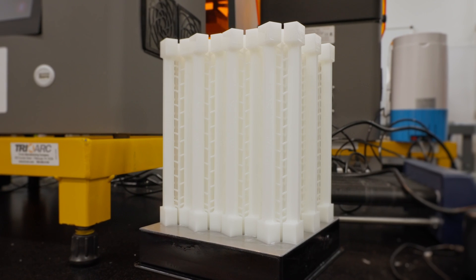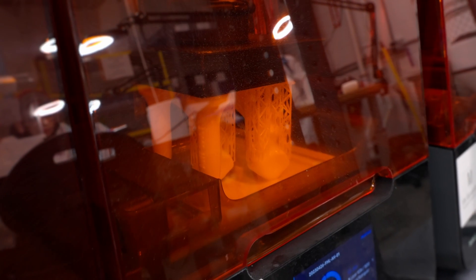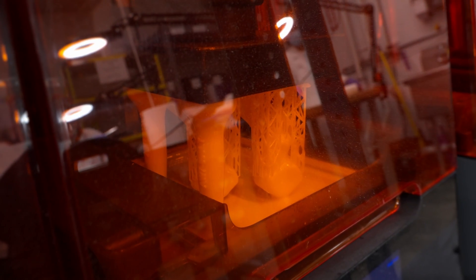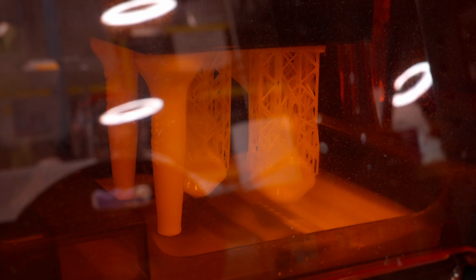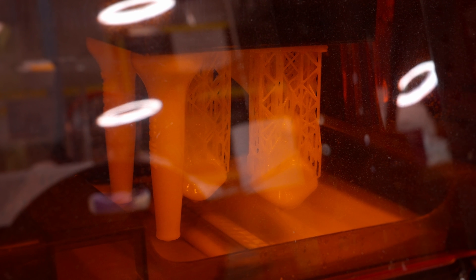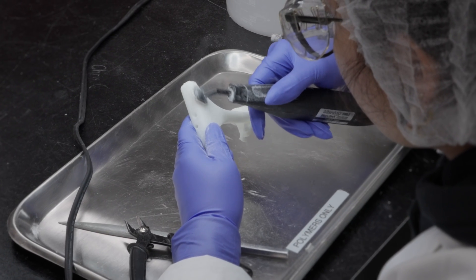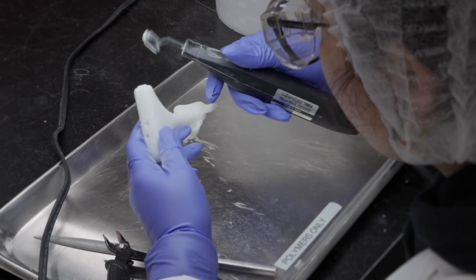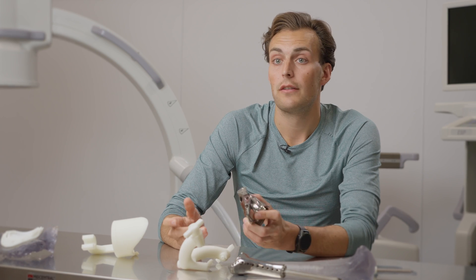The single biggest benefit for surgeons is the ability to treat their patients in a unique personalized way. 3D printing allows us to iterate very quickly and take surgeons' feedback and deliver a new solution relatively quickly. Patient-specific implants, I think, have a really large future in medical device when you think about the next five years.